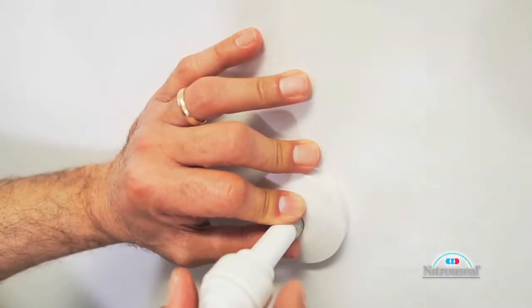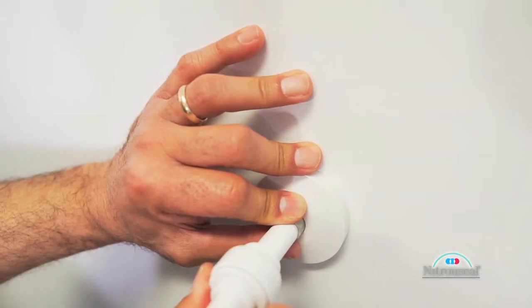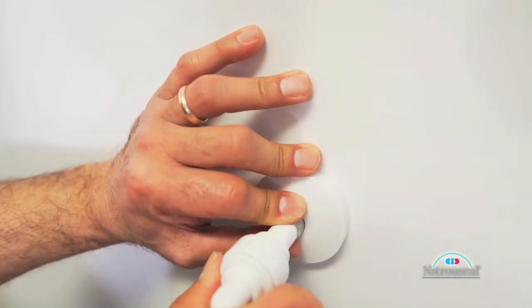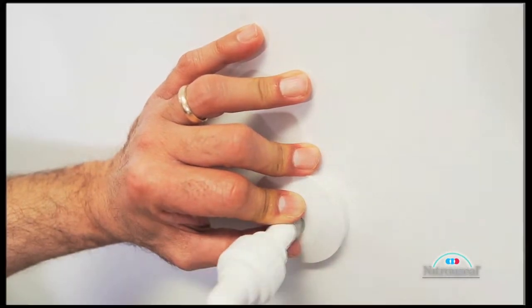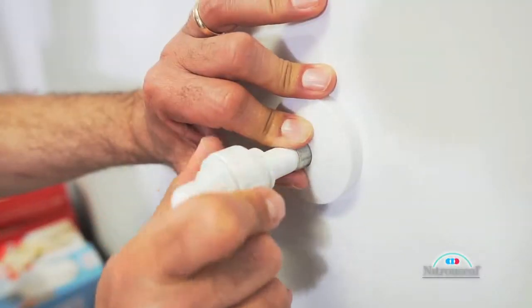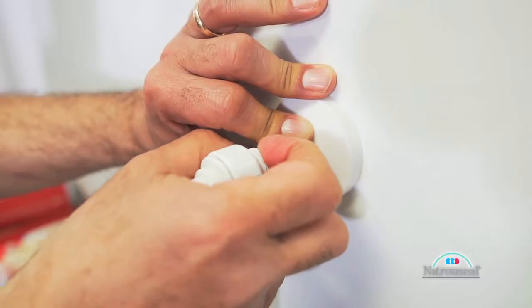Connect the opposite free end of the braided hose to the PVC exhaust pipe after the pipe has been suitably mounted on an outside wall of the procedure room. To remove the hose, simply unscrew and release the collar by pulling it away from the wall.